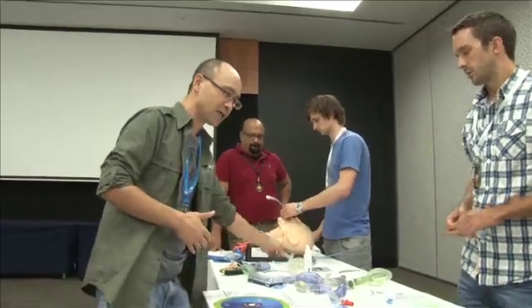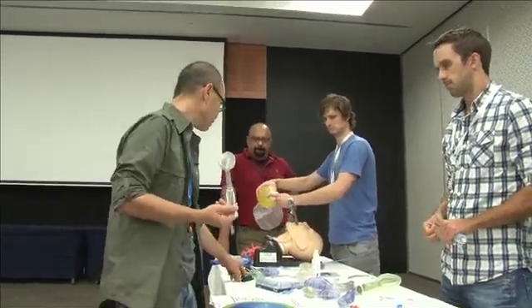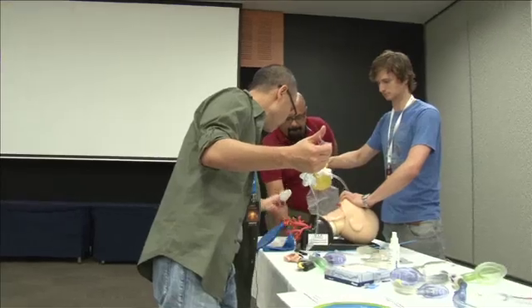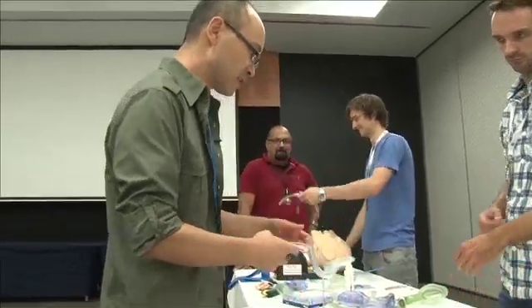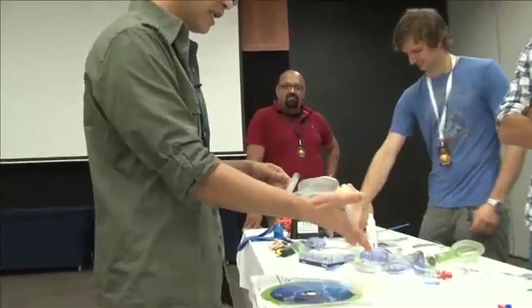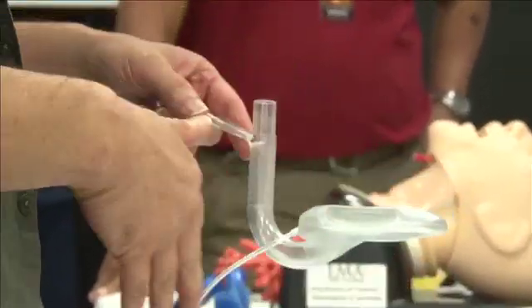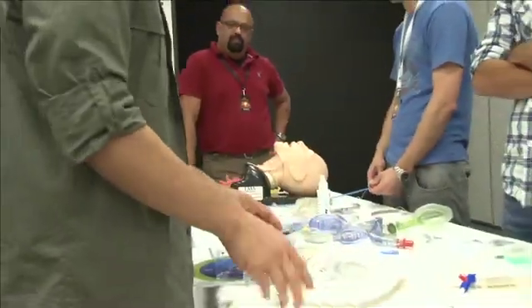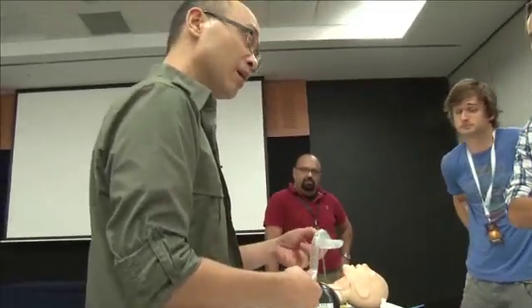Let's move on to the fast track. Are you guys familiar, or have you carried this? It's just a nice device in that you can ventilate - it's obviously an LMA, but it's also designed to intubate blindly. In my airway audit, this device has saved all our failed intubations over the last eight years, except for one.